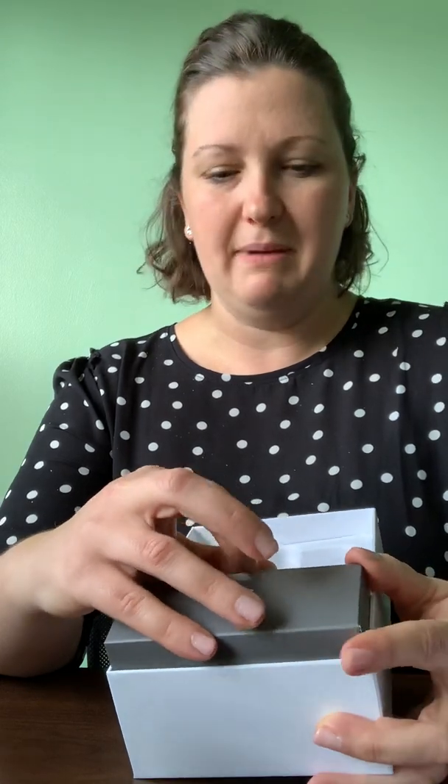Also, if you want to travel and not have to think about it, you can throw this in your bag and you're good to go for several days. I had one patient with the previous generation with one of these chargers, and she made it five days camping. In the middle of the sixth day, they pulled into a rest stop and plugged everything in, and she was off the air for about a half hour on the sixth day. You can really get a lot out of these chargers, and these devices have a tremendous battery life.